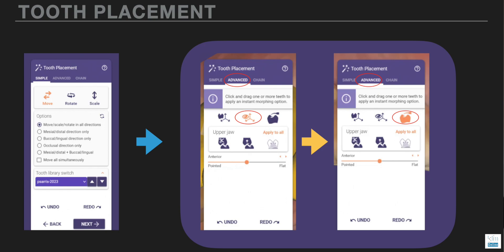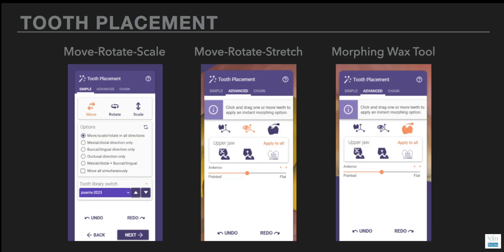In Exocad, I have found that same type of workflow, which has really made it easier. Since Exocad offers such a wide range of features, it's really easy to get lost in the software — you don't know what to do next, which tool to use, or how much to do within one tool feature before moving on to the next. So I'm very systematic in the way I work within digital softwares, starting with CEREC for years and now Exocad. In the tooth placement wizard screen, that's where I do most of my setup of my teeth for my digital wax-up.